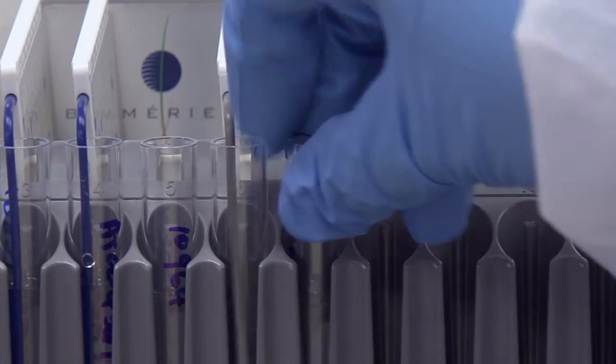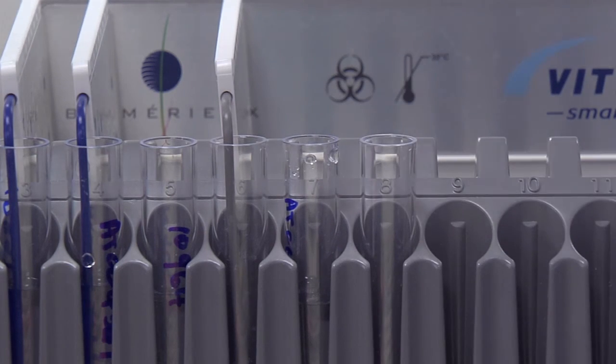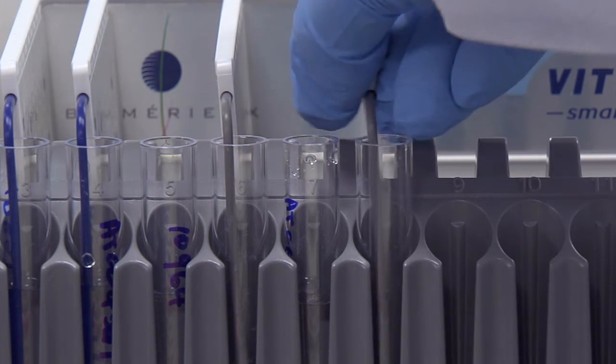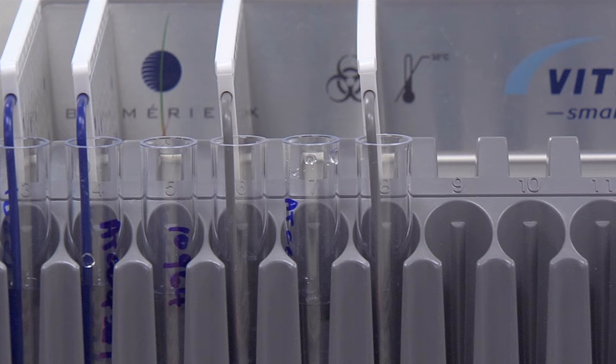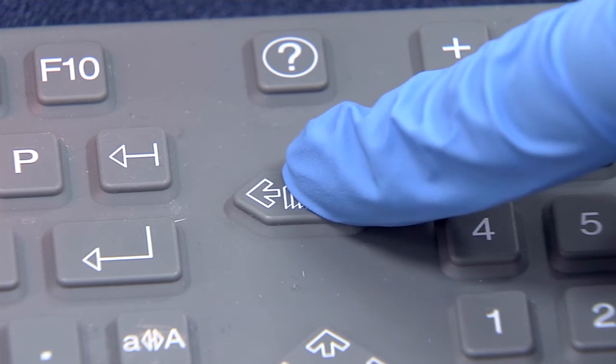Place the inoculum tube in well 7. Place an empty clear polystyrene tube in well 8. Turn the AST card and place the transfer tube into the empty tube. If there are additional isolates to be set up, press the next slot key.